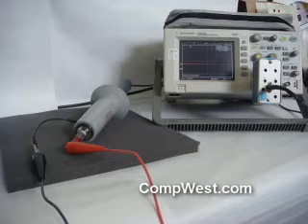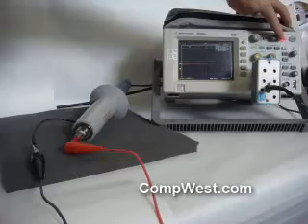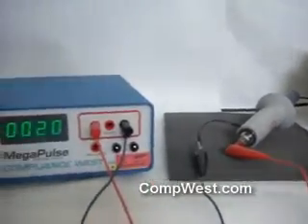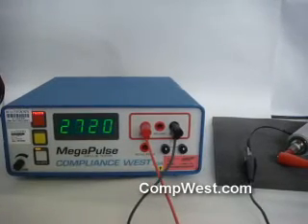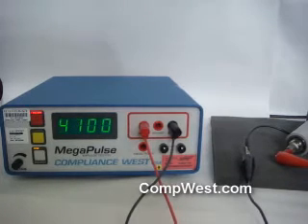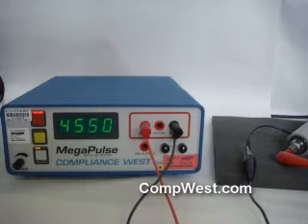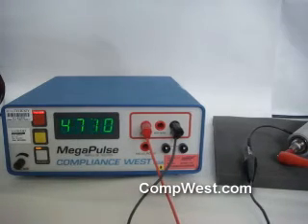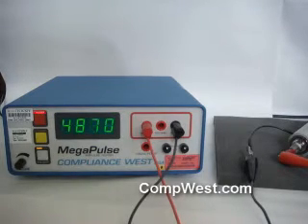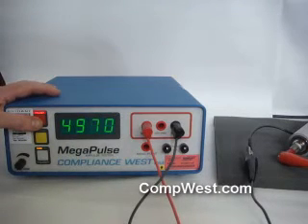Then set up the scope so it will capture a waveform. In the case of the DSO3062A, press Run. Press Charge on the Megapulse DeFib5 and wait until the output voltage shown on the front panel display is 5000 volts. Press Trigger when the front panel display shows 5000 volts.